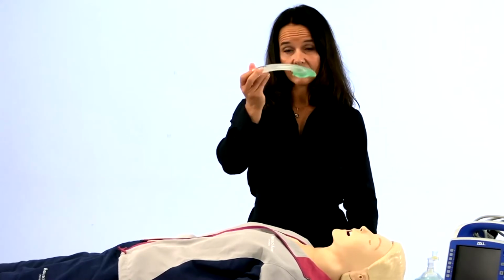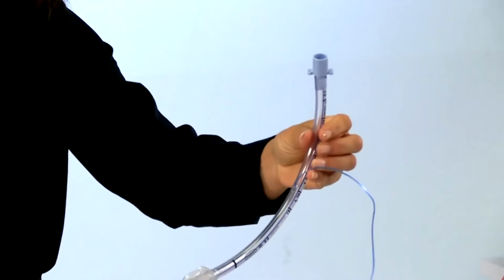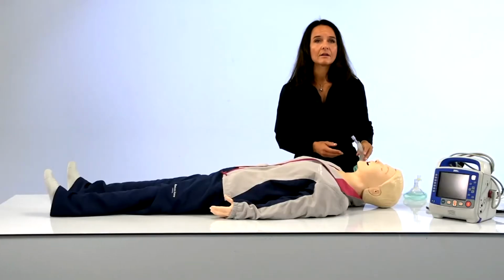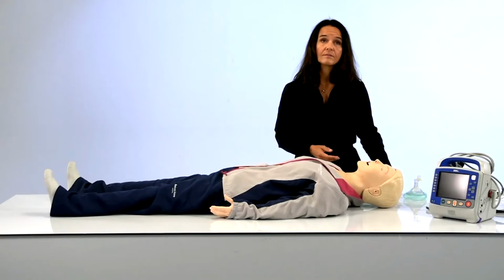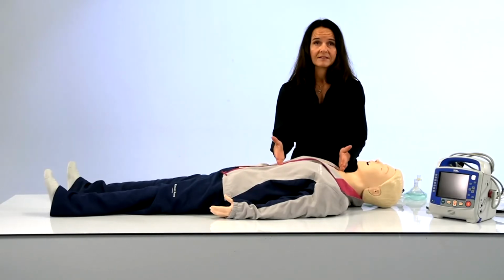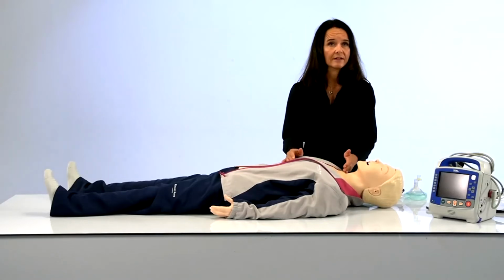The Resusci airway head is primarily designed for using supraglottic devices, but it also seals and provides good ventilations to your feedback, to your QCPR device feedback when using ET tubes. However, this is not a skills trainer, nor is it a solution to train for difficult airway, as there is no anatomy past the vocal cords. Laerdal offers other solutions for that.